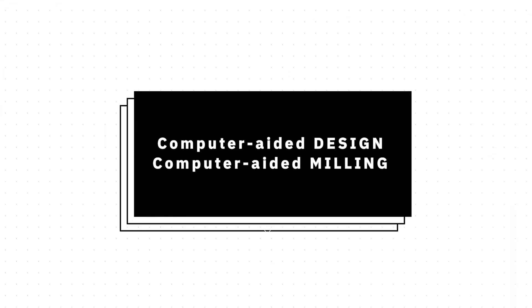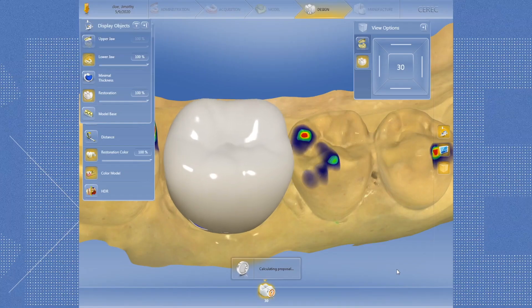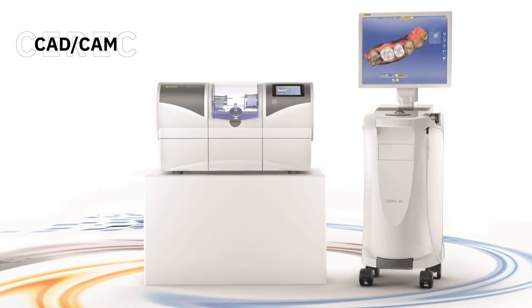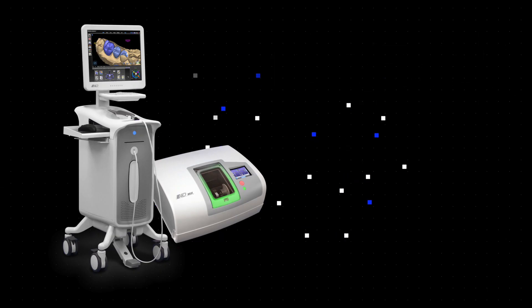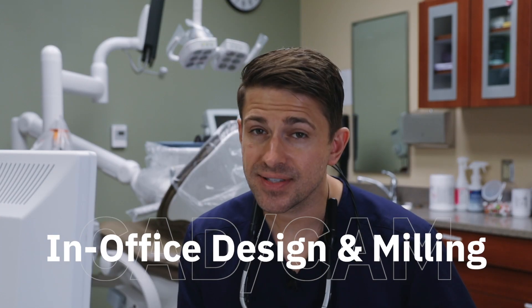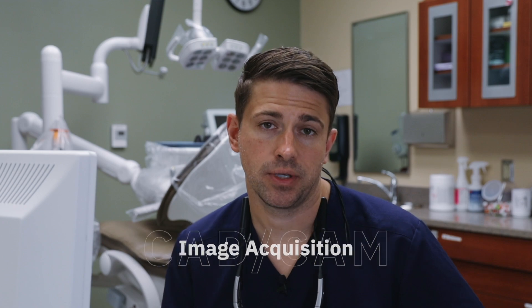CAD CAM Dentistry stands for computer-aided design and computer-aided milling, meaning you use a computer to design and mill a dental restoration, but the use of dental technology does not stop there. There are a number of CAD CAM based units on the market such as the CEREC system by Dentsply Sirona, E4D Dentist, iTero, Lava, and the Chairside Oral Scanner. CEREC and E4D have the ability to do in-office design and milling, and iTero and Lava scanners are used for image acquisition only.